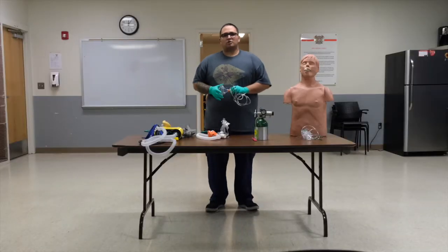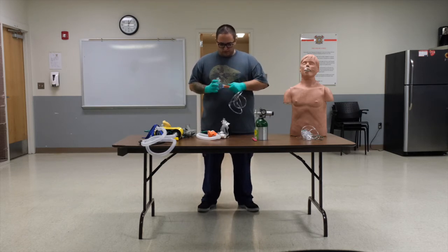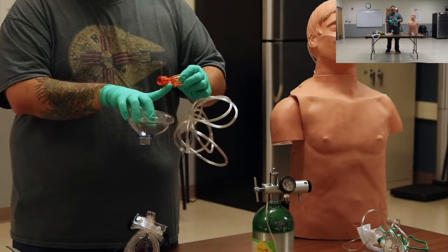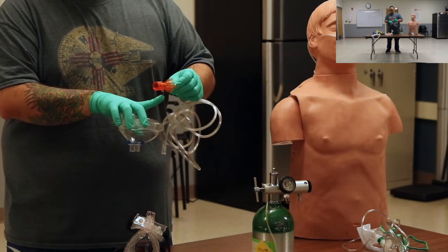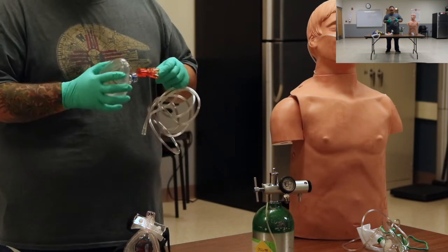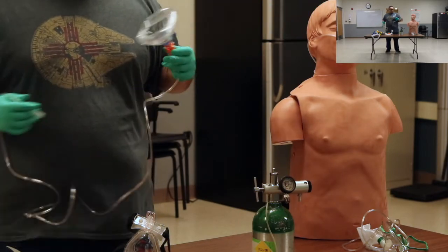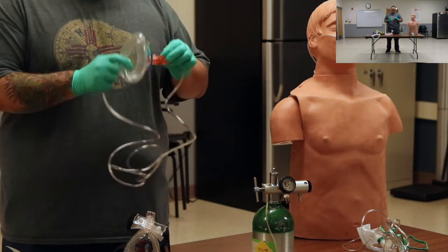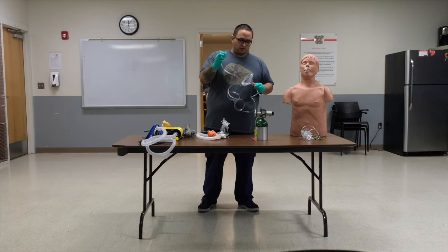Alrighty guys, quick video on the O2 disposable CPAP. So the machine itself is actually very simple. We got a kind of a pressure valve connected to an oxygen line. Right here typically would be a pressure gauge that you would adjust, or that you would be able to see exactly what your pressure is as the patient is breathing in and out. These are the devices currently that Albuquerque Fire and Rescue are using on their rescues. Super simple setup, place the mask in, the actual PEEP device right here, and then the oxygen line.